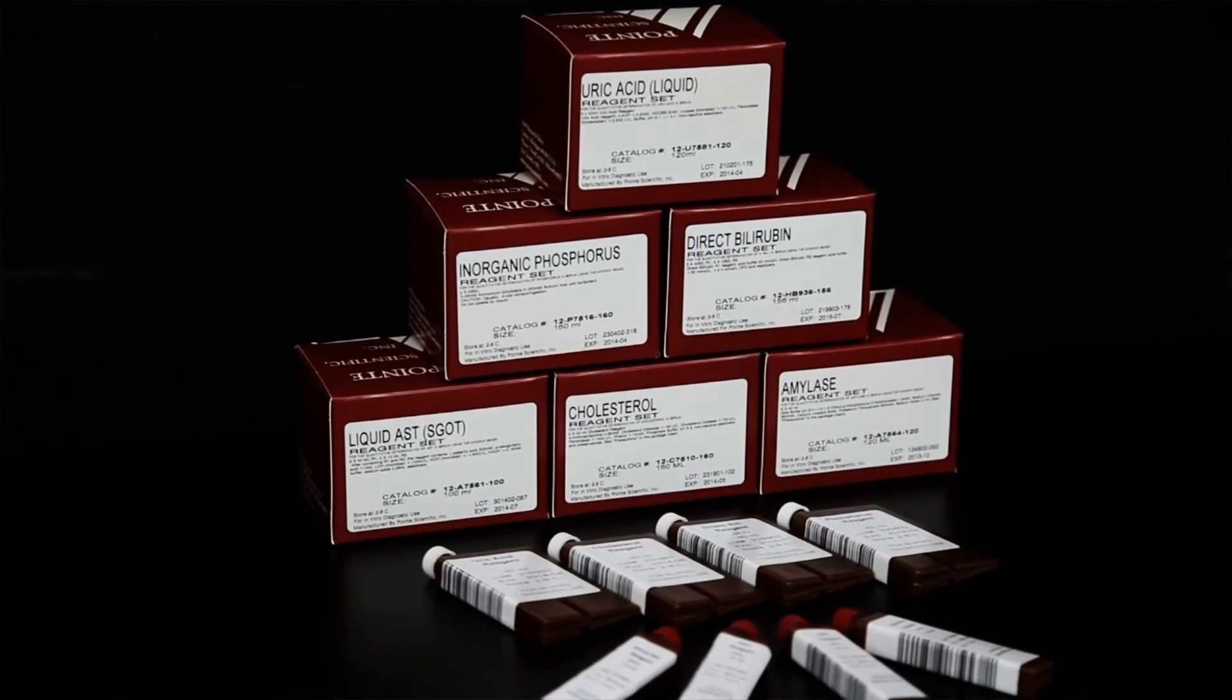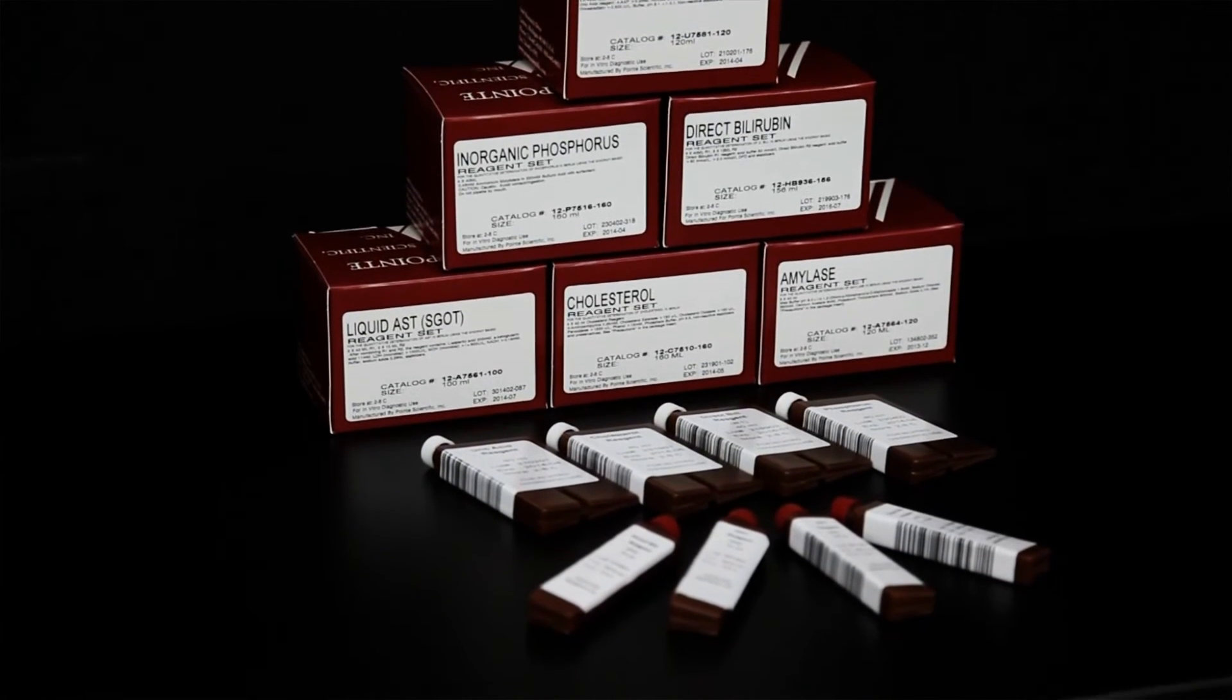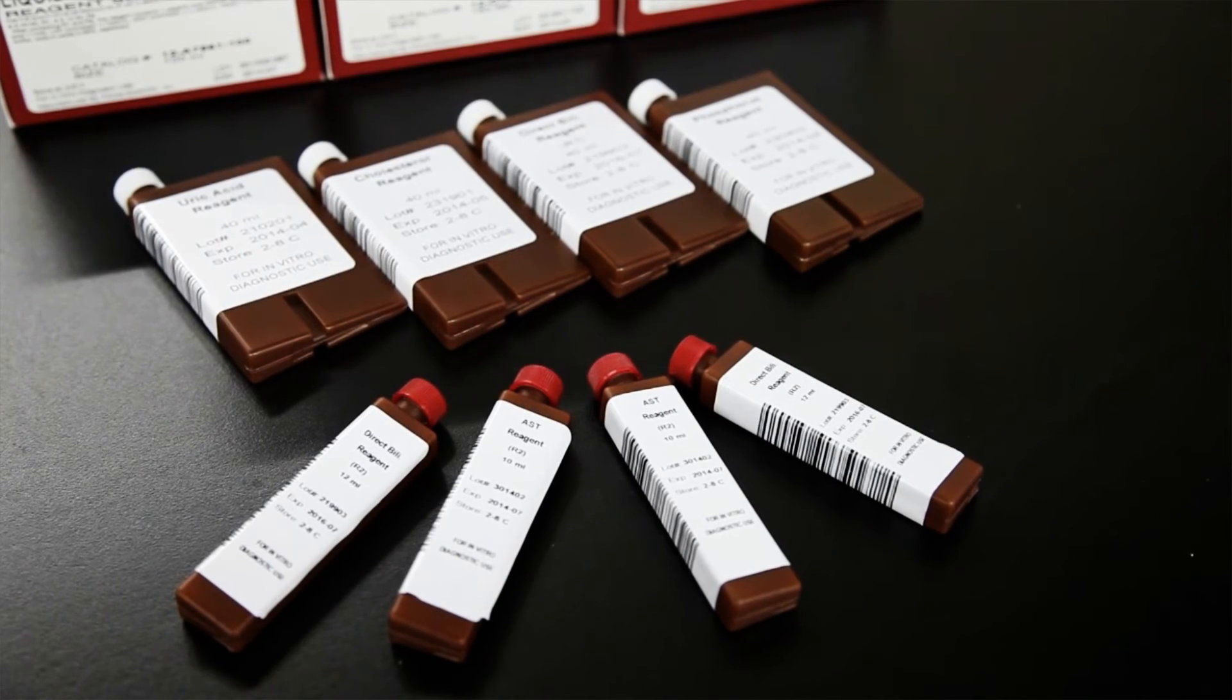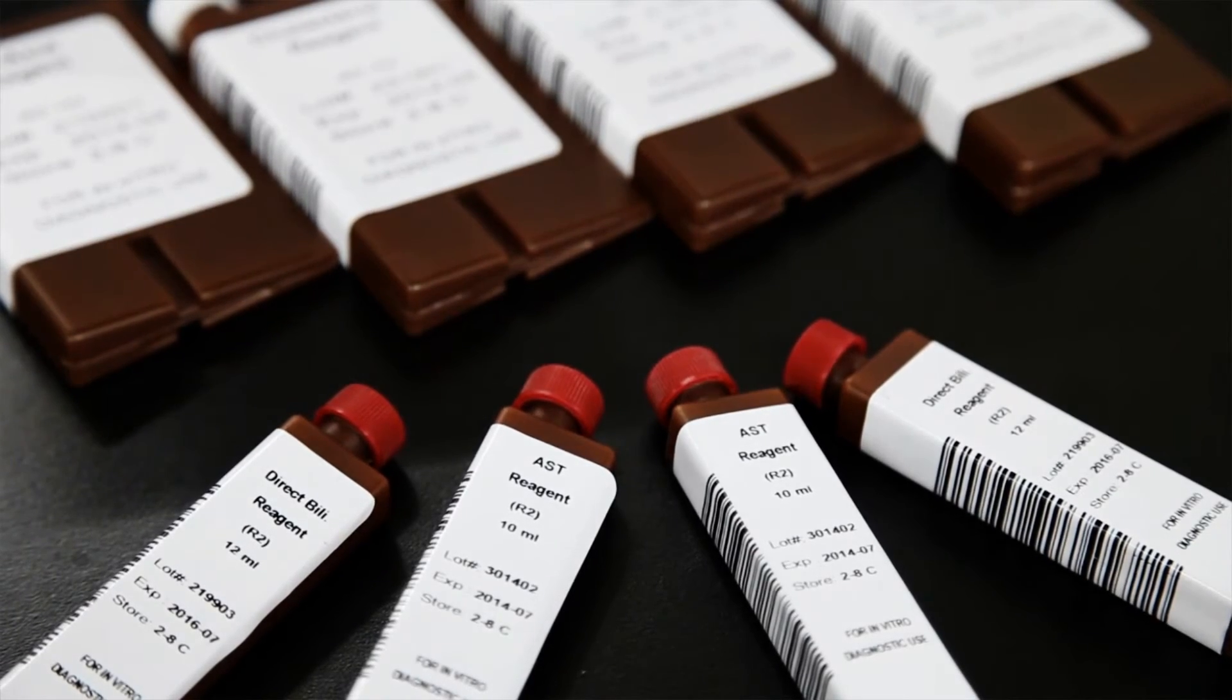Point Scientific, a Medtest company, develops and manufactures clinical chemistry reagents specifically for use on the BS200 Analyzer in the United States.